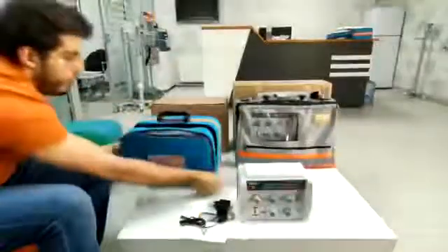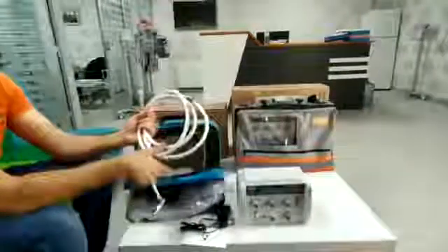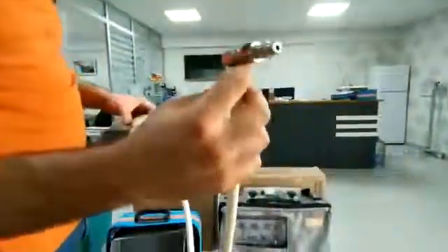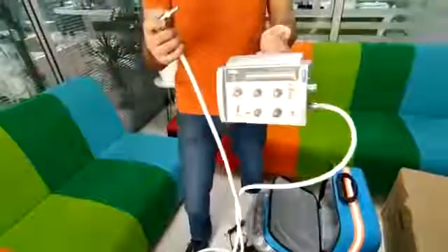And we have a two meter oxygen supply line — this for the hospital system and this for the ventilator. You have to plug this here, and then you have to plug this to the hospital oxygen system. You can use this ventilator with this.